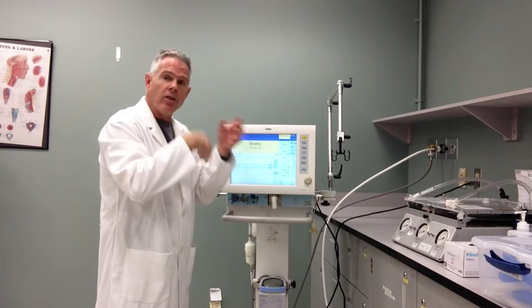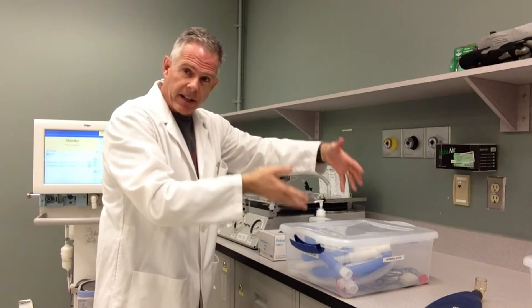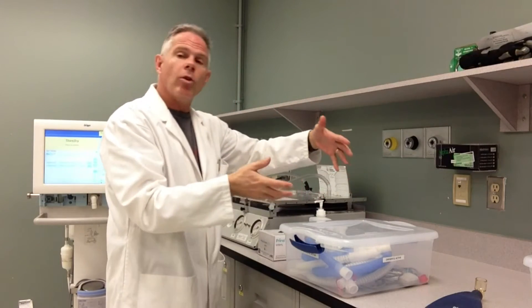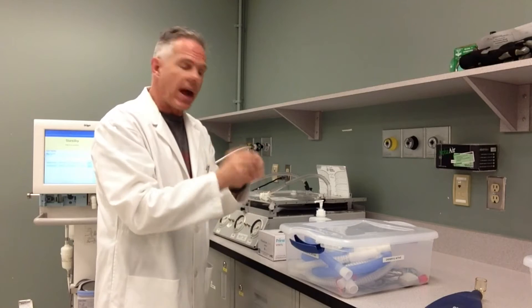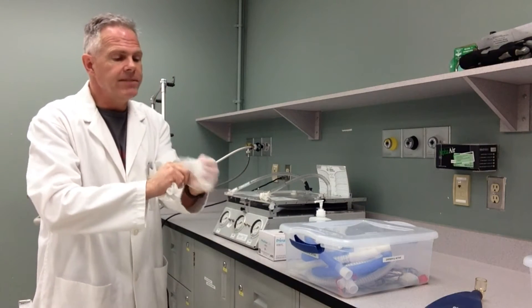Now I'm getting ready to apply the circuit to the ventilator. This is a good time to get our gloves on. I'm assuming that my circuit is clean and sterilized — it's come up from cleaning. Normally in a hospital, this would be in nice clean bags, and a lot of the components would be brand new. For our purposes, we've got it in a nice sterile box that's just come up from cleaning. So I'm going to put my gloves on.